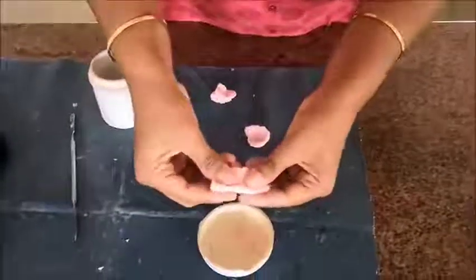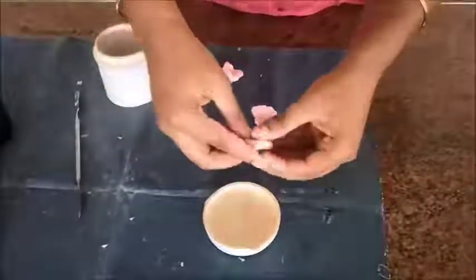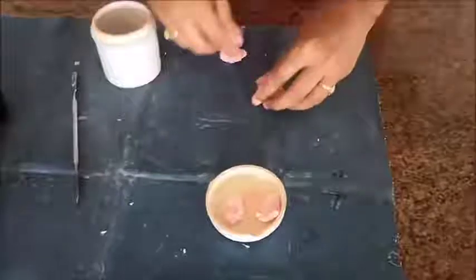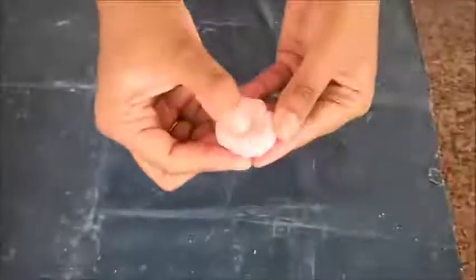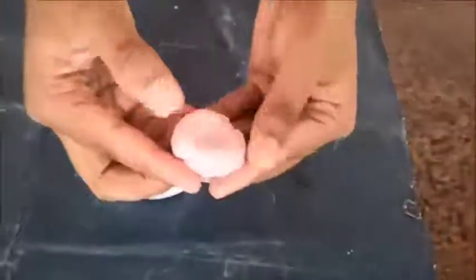Next is the fourth stage, that is the rubbery stage. Here we can see the material has a rubber-like consistency — it is rubber-like and resilient. This is the fourth stage of polymerization.